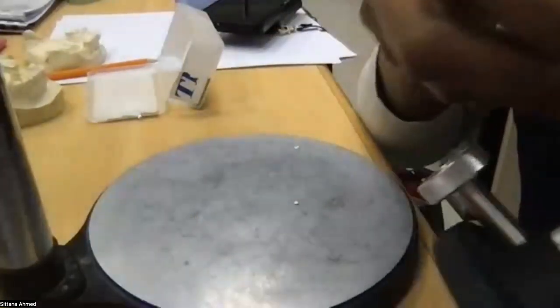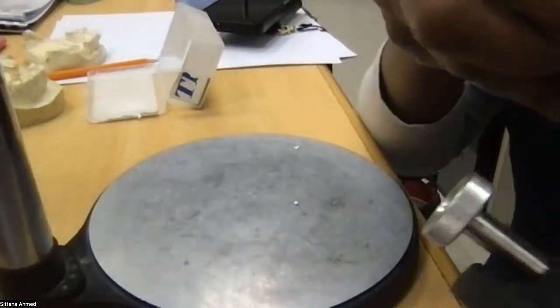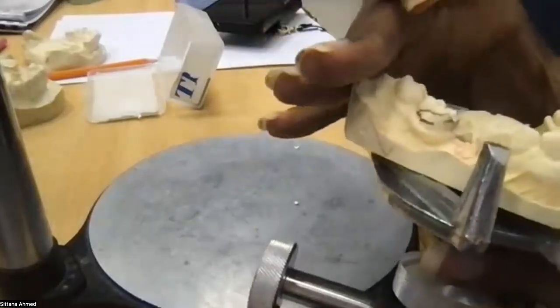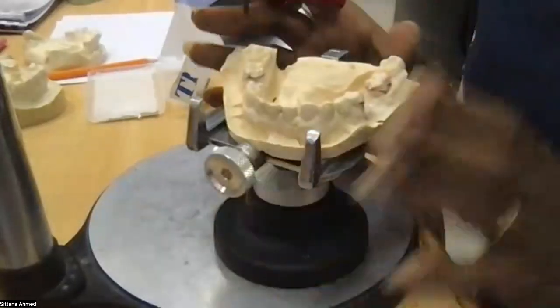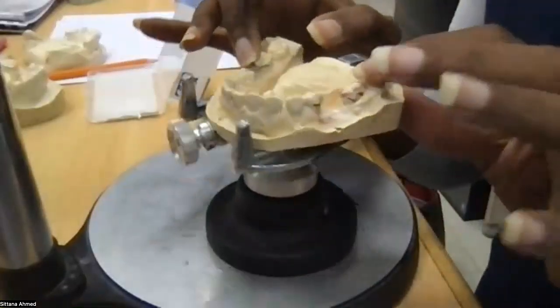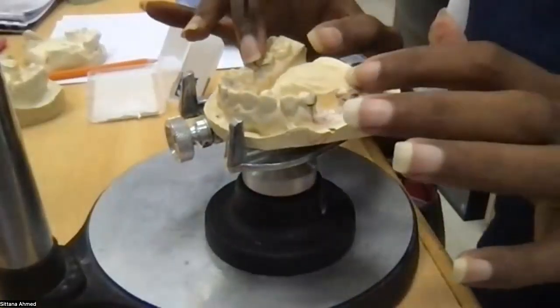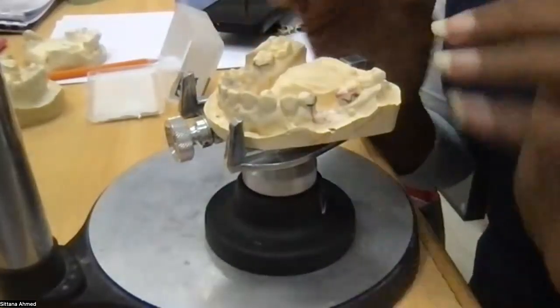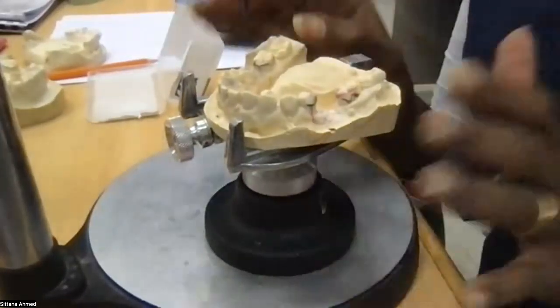So here as well, change it to a ring clasp, and I am happy with the design on this side. Then it means that at this tilt, my design is confirmed, only modified by two simple modifications, which are two ring clasps, and there is no addition of composite, there is no alteration of the survey line.